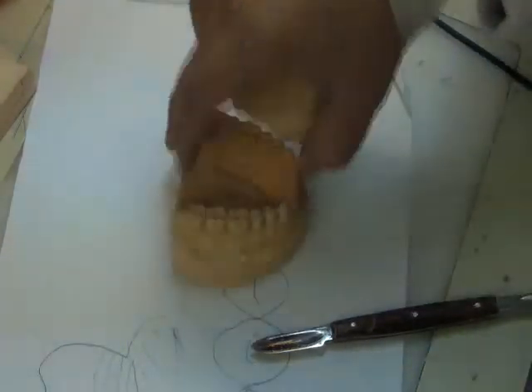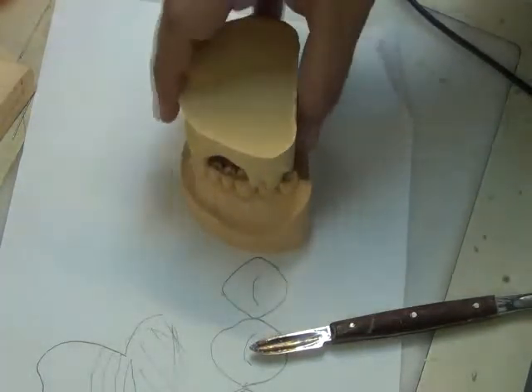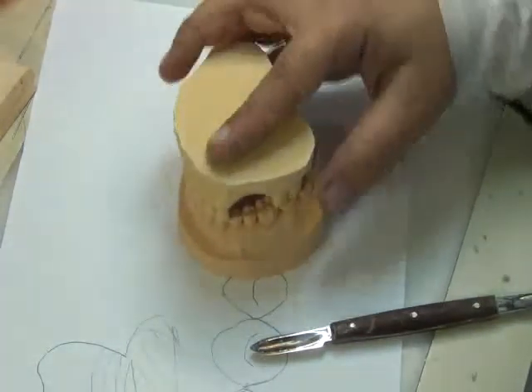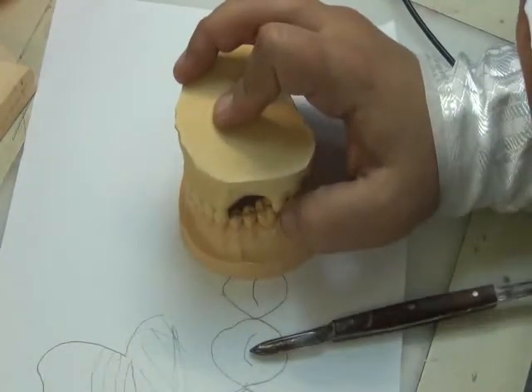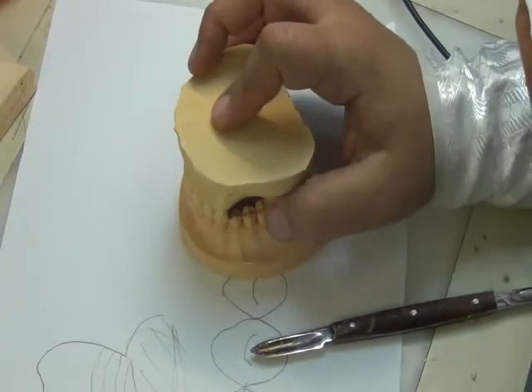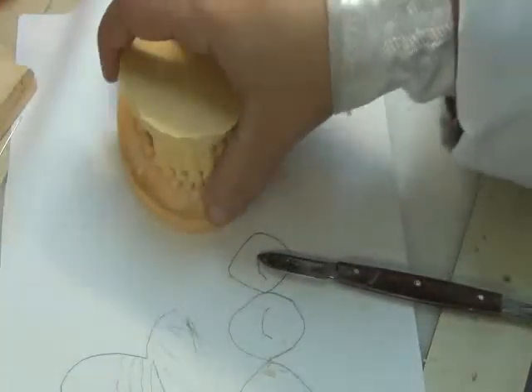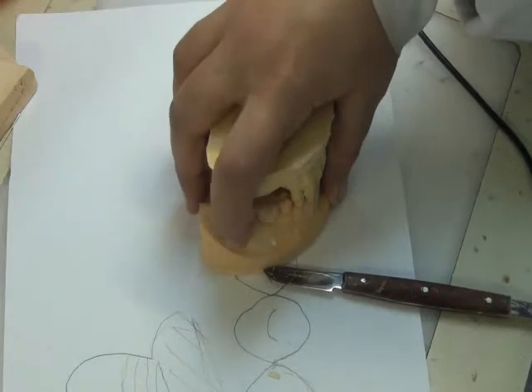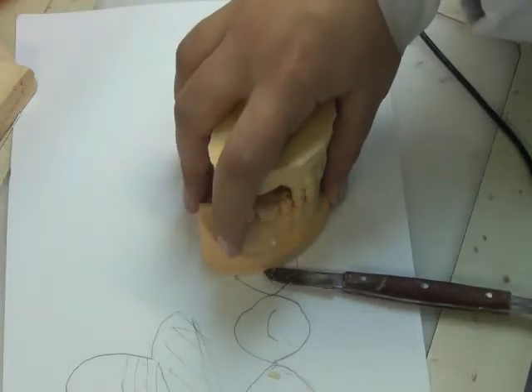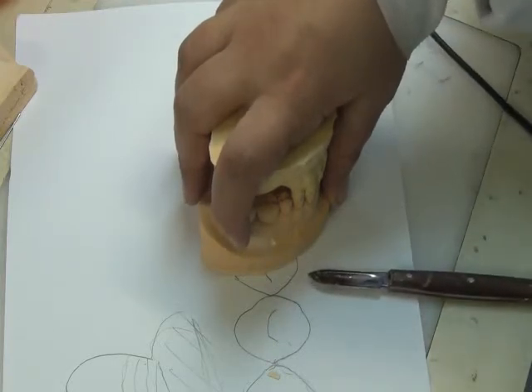occlusion. Simply we ask the patient to take impressions, in this case. Suppose this is the only saddle area missing, simply we ask the patient to close on the wax. We close on a bite registration, rubber or wax. We'd simply take one impression and then go and do our dentures. If we have a free end saddle, I have to put in a visit we call jaw registration visit, and let the patient just bite on the wax block here. If we have two free end saddles, I add the Fox plane registration and the bite in the same occlusion or maximum intercuspation of the patient.